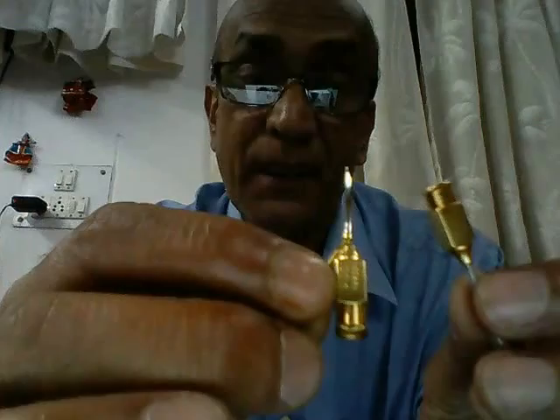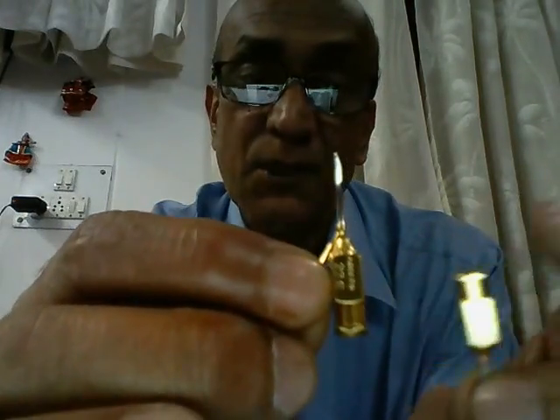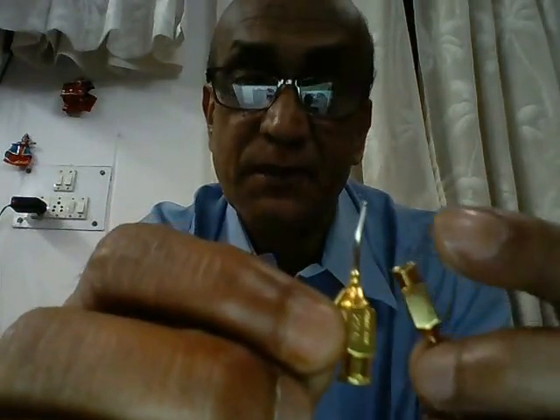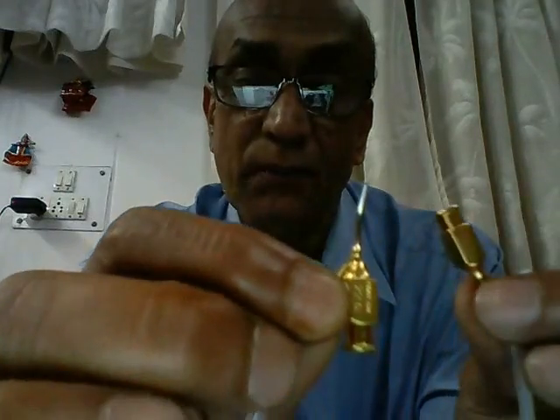In the reverse Simcoe, the hubs are interchanged. We aspirate through this hub and we irrigate through this hub, but the ports here always remain the same — the anterior port is for suction or aspiration, and the side port is always for irrigation.